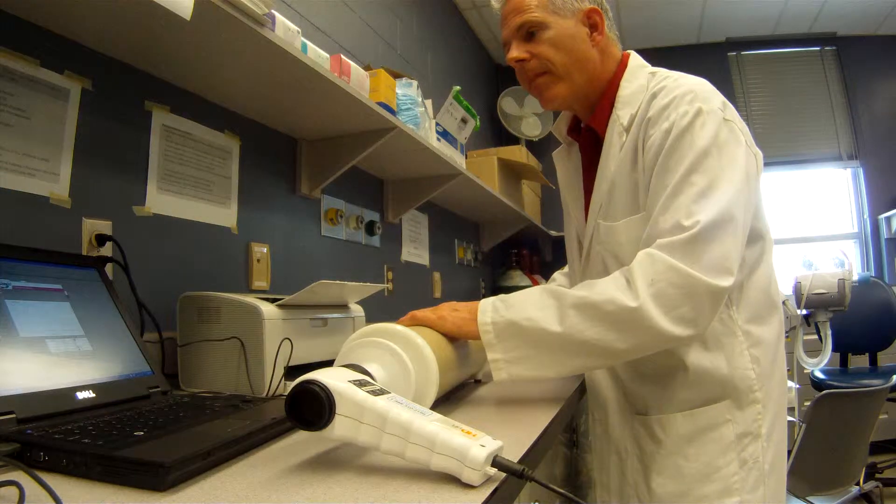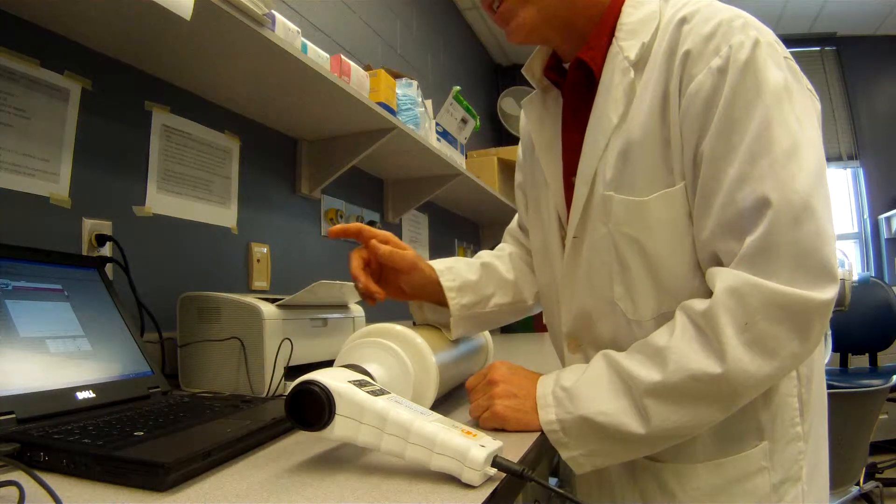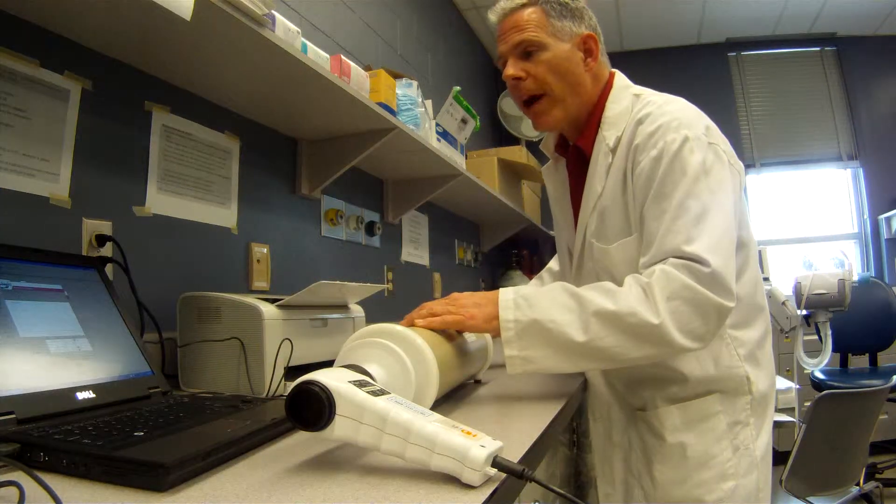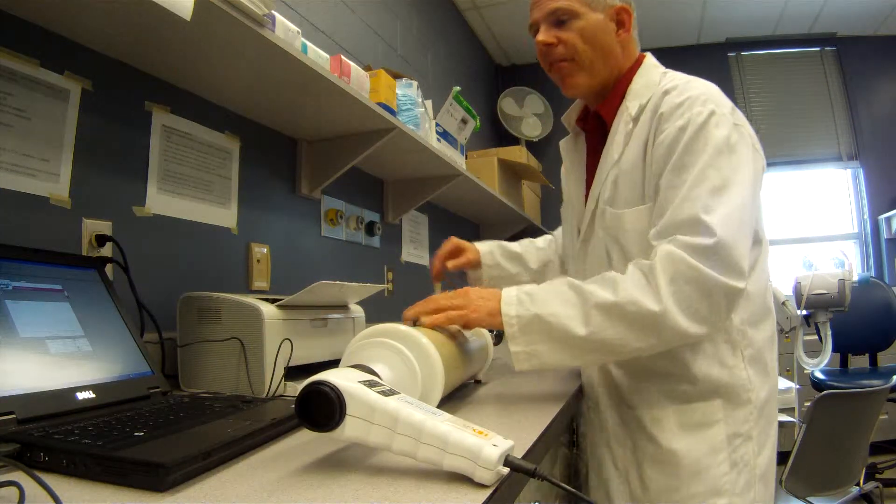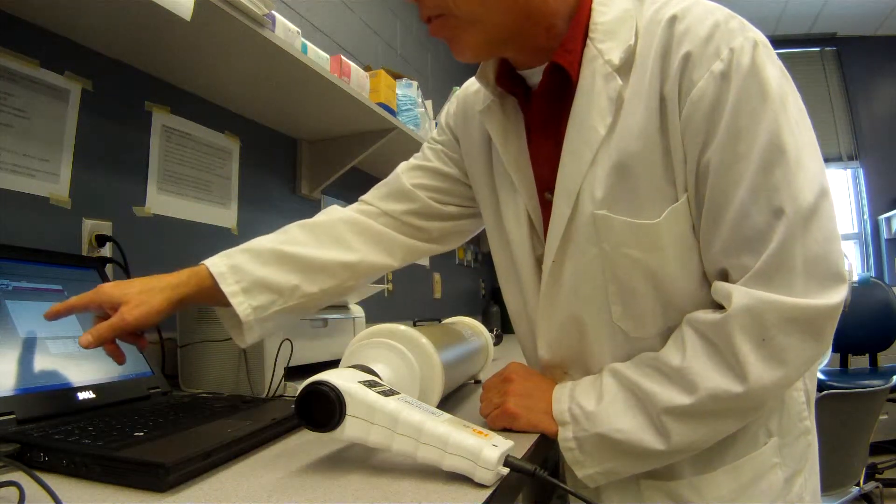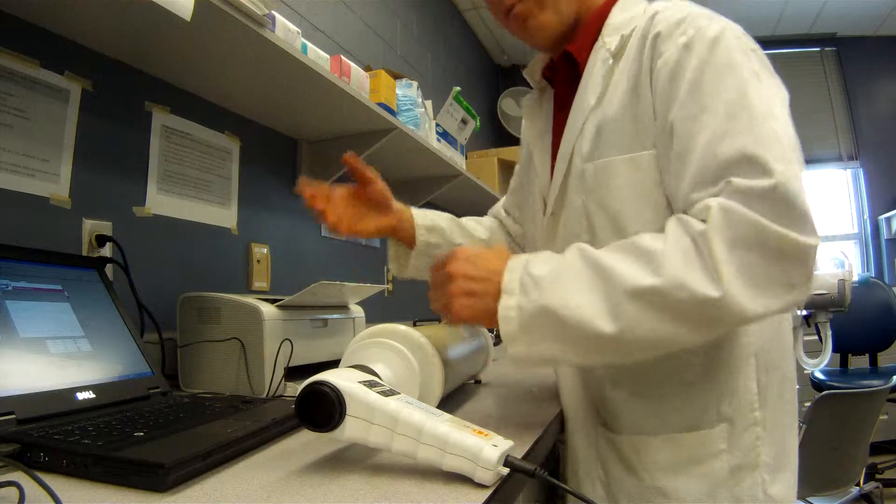It starts doing that. I pushed it in the wrong way, so I hit the space bar. That's no problem. And it'll come back now. So I'm going to pull back quickly and try to get my flow rate as close to that dotted line as I can. I got it pretty close. So it says continue. So that was inspiration.